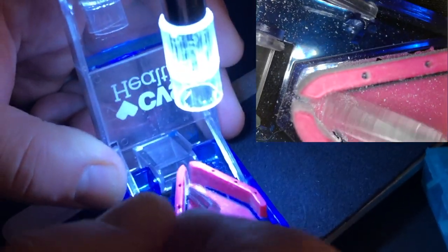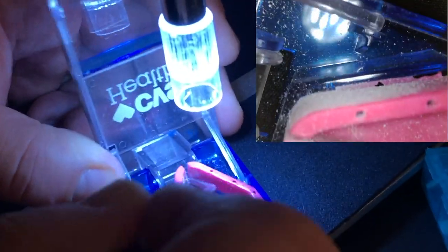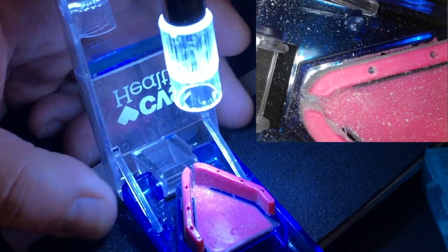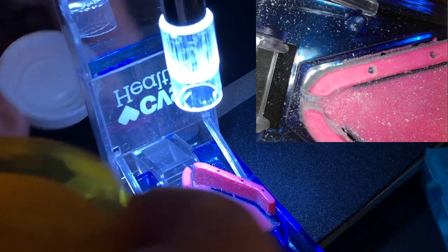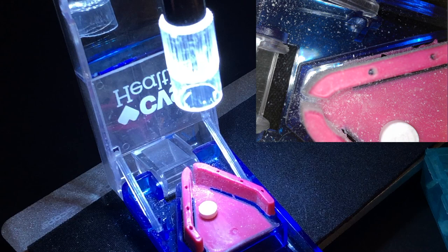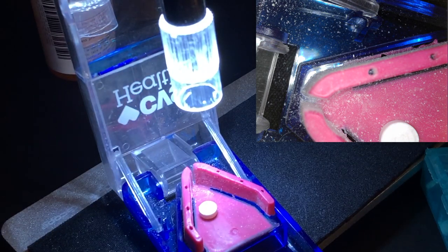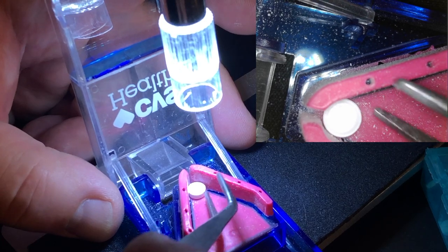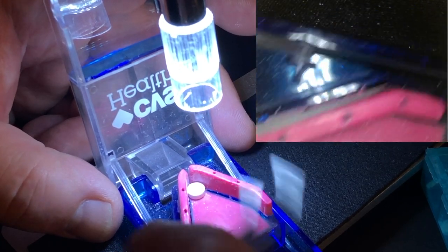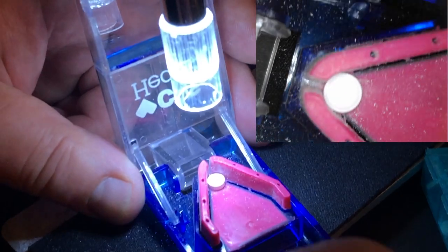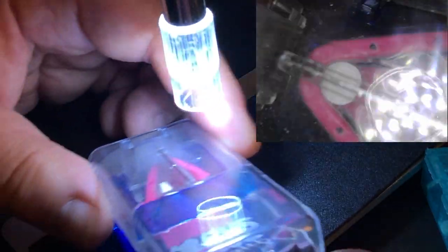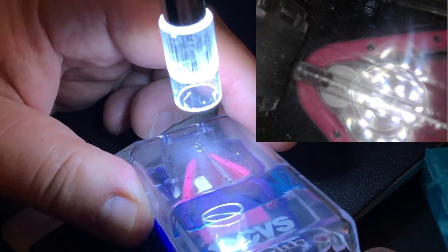See, I'm going to remove this a little bit to make it clean underneath. Now, you wonder why my pill cutter is so dirty. You can wash this thing in the dishwasher if you want. It's not good for the blade, but you could. Or wash it under water. In this case here, my patient is a dog. And it's going to be fine. You know, they lick their butt. They don't need it super clean in this case.